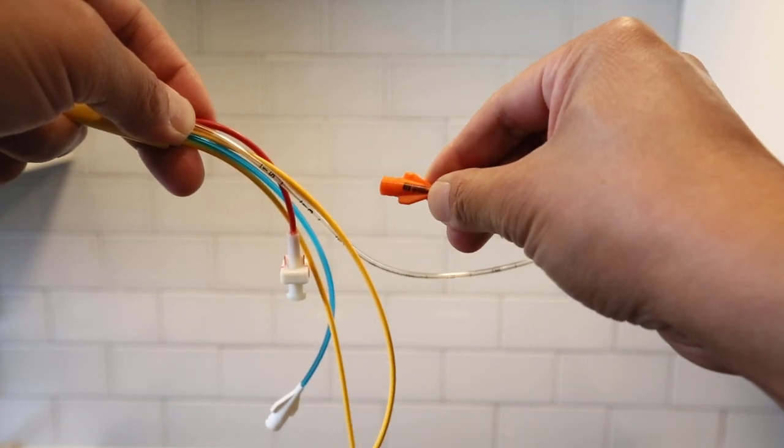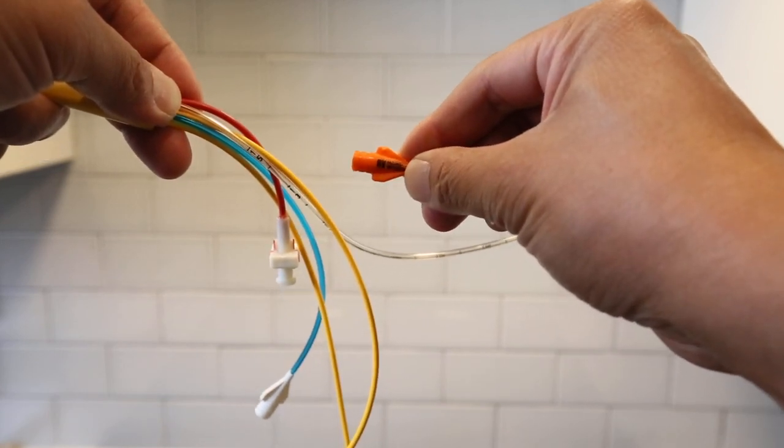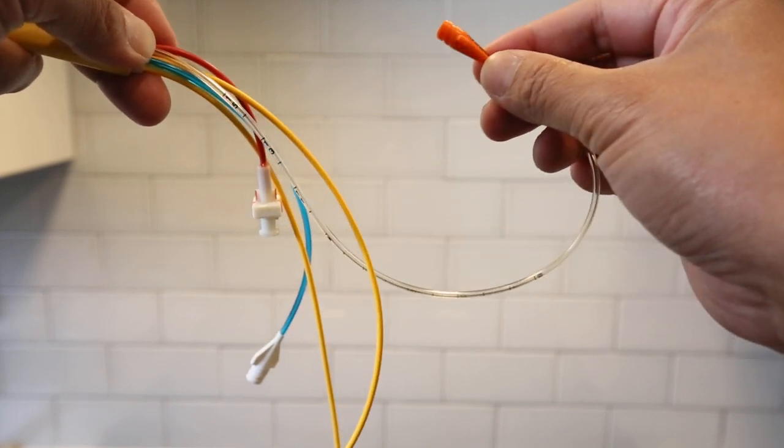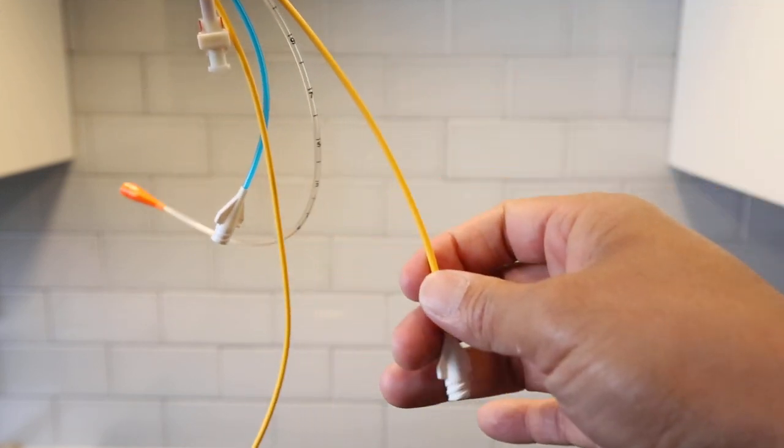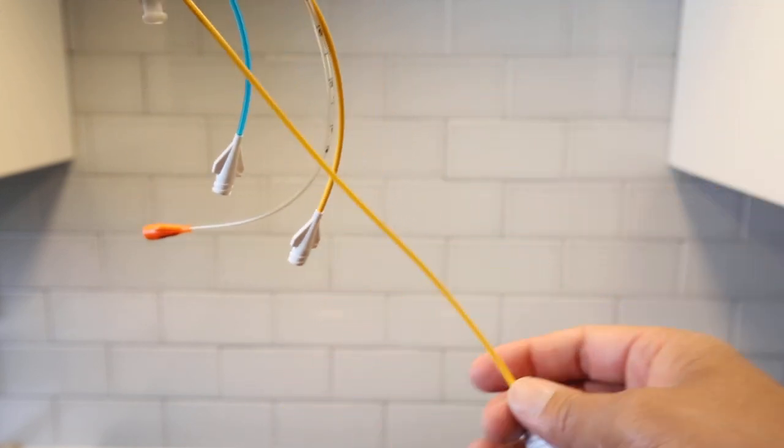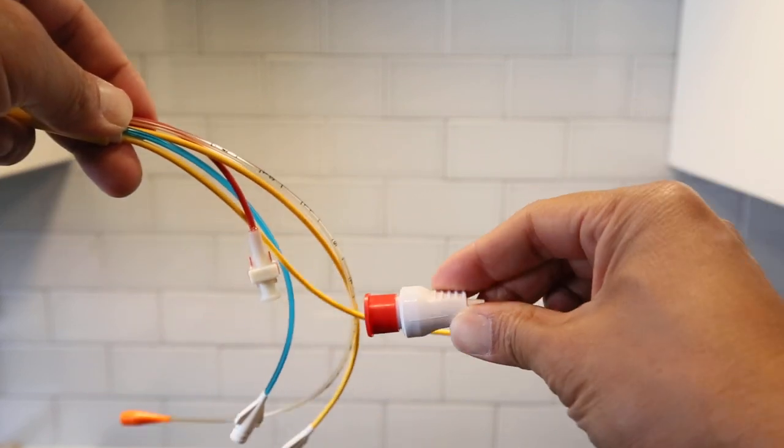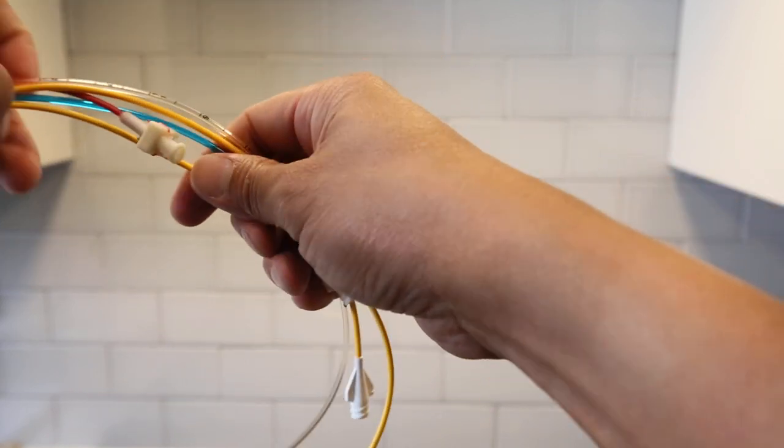Then you have your thermodilution RV pacing infusion. Those are it.